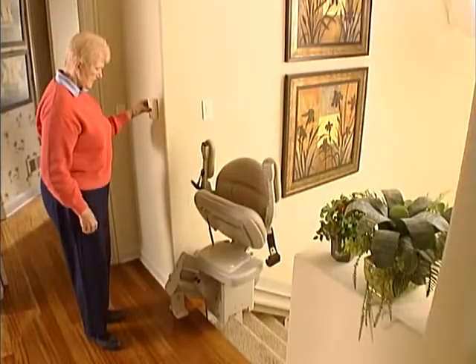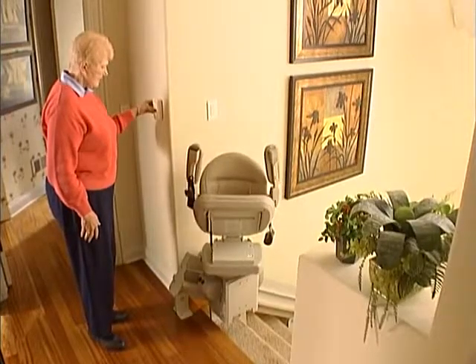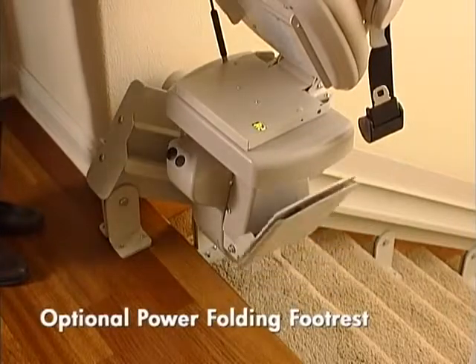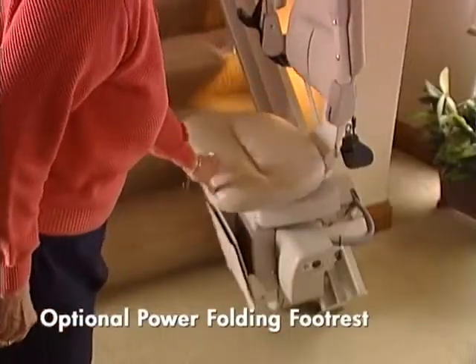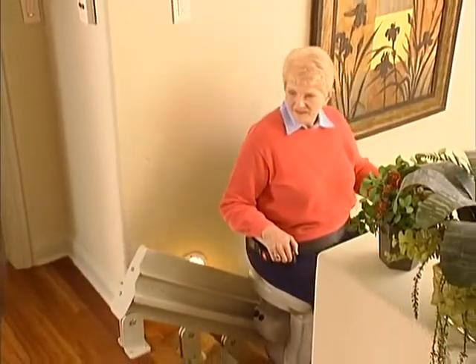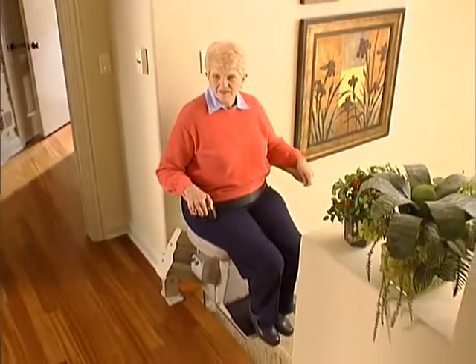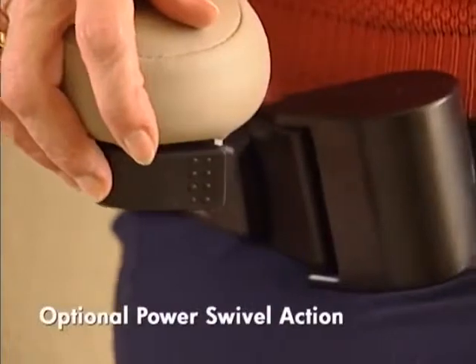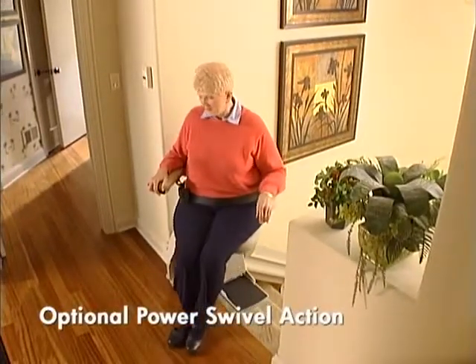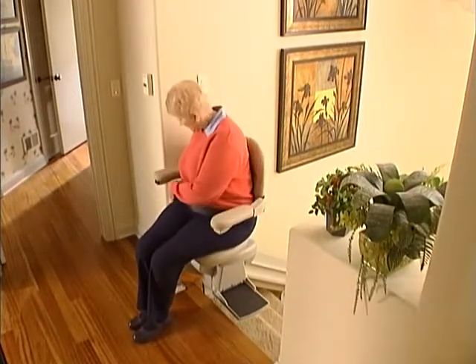Powered options are often the choice of many. For individuals with back problems, the power folding footrest is a godsend. Instead of reaching down to the footrest lever, you simply raise the seat and the footrest comes up. Lower the seat, the footrest lowers into place. For a confident and easy exit at the top landing, the Elite Curve offers an optional power swivel option, controlled by the up-down rocker switch or by the call-send transmitters. The seat can turn up to 90 degrees with a steady, fluid movement. The rider exits with a minimum of effort and improves stability.